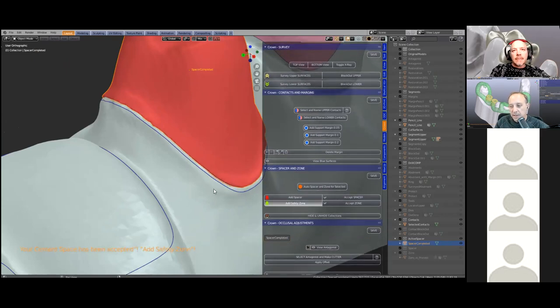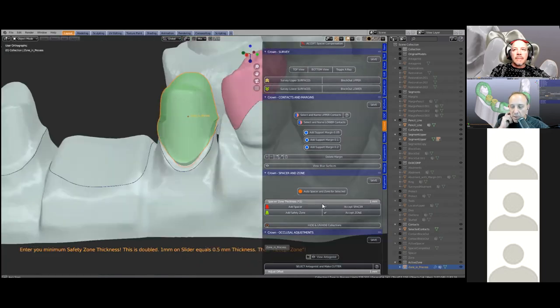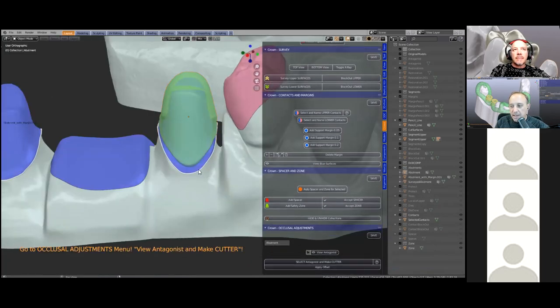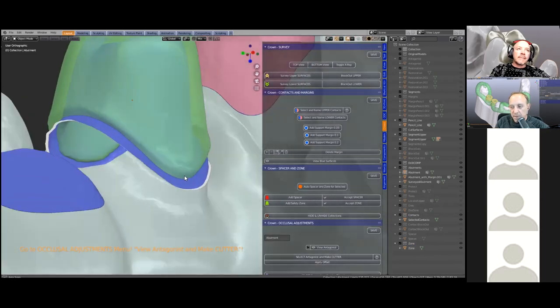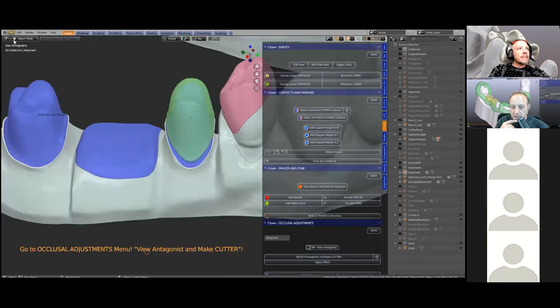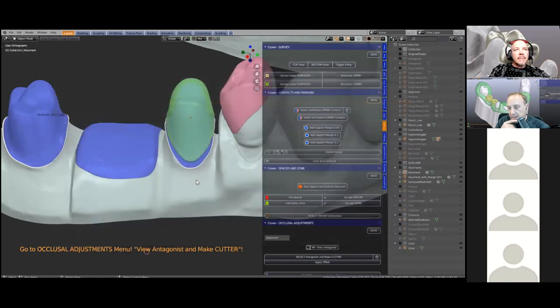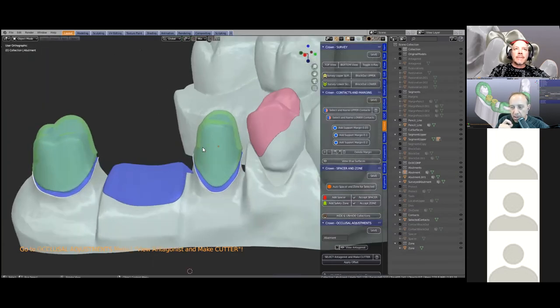Next goes on a safety zone. The safety zone is just an indicative zone which will let us know when the coping or the crown becomes too thin. The idea is that the tooth library tooth mesh needs to be pulled over the green zone. The safety zone is set by default to 0.5 millimeters — if you think that's too thin you can always set it a little bit thicker.